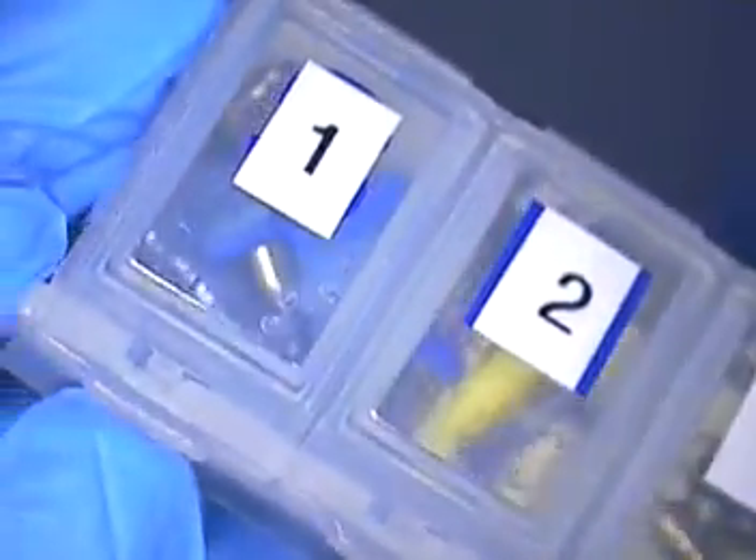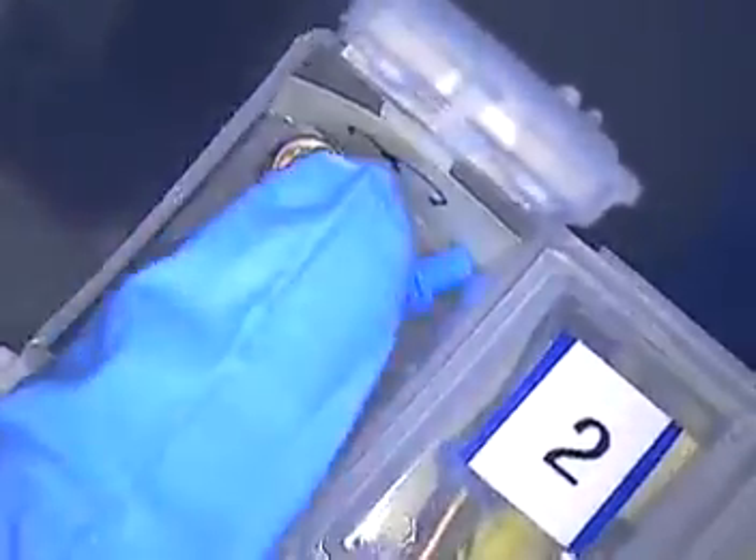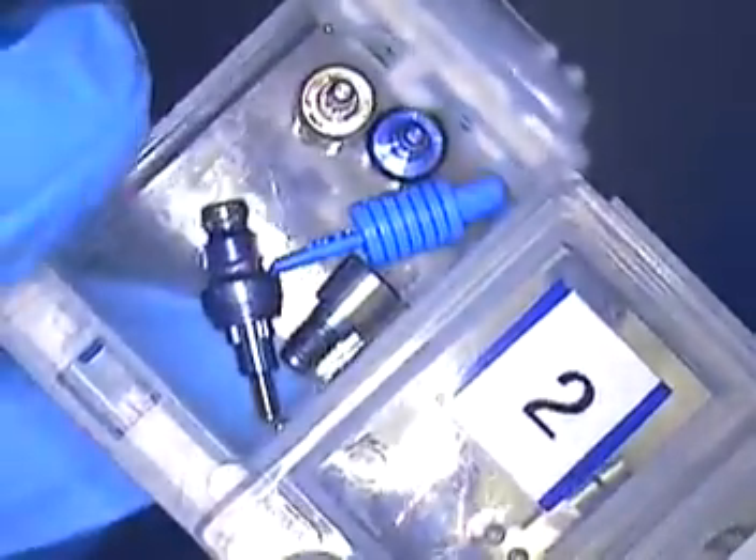Maybe I'll give you one more tip here before I go. We talked about using the pillbox — a great little item. It has individual locks and a locking mechanism so you can keep your implants together: healing abutments, impression copings, try-in abutments, so everything stays organized. You can number them by teeth — I number them one through seven, starting in the upper right side and working my way over to the upper left side. So there are seven implants with this case.